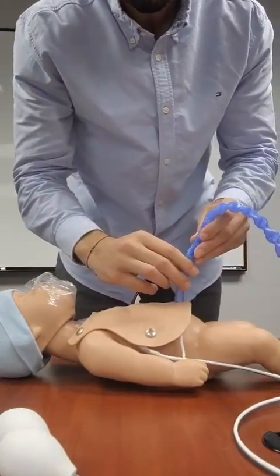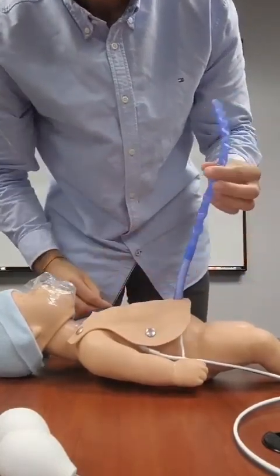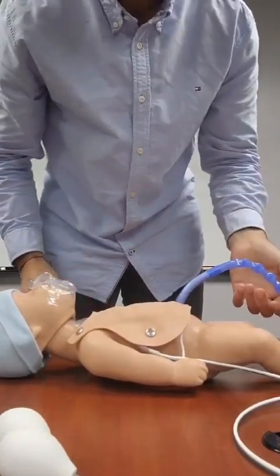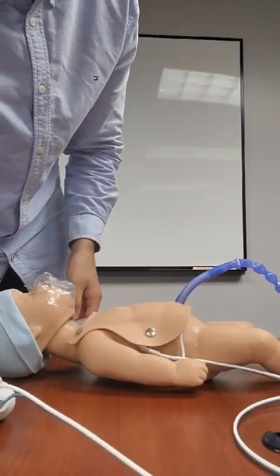I'll also attach the umbilical cord, which is, again, very easy. And then show you how the tubing works.